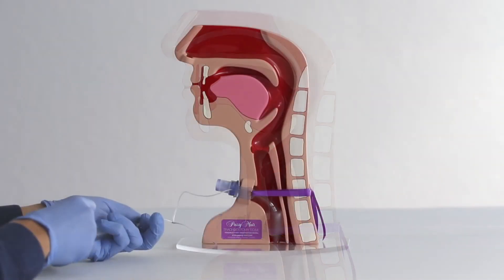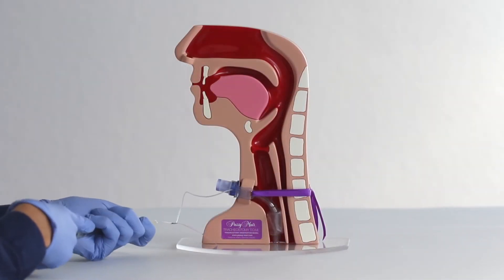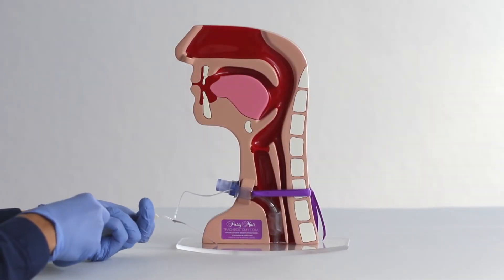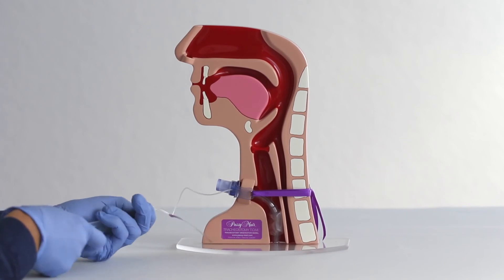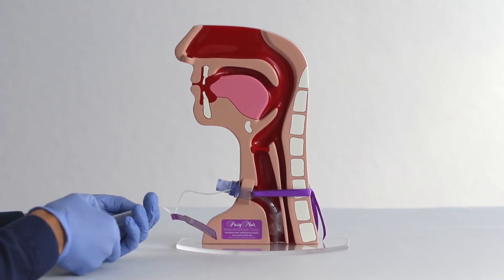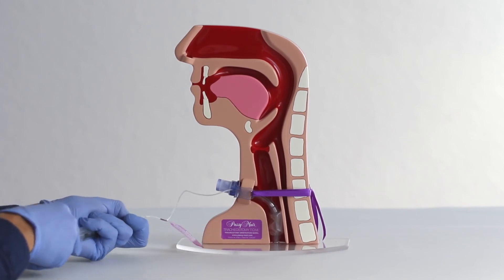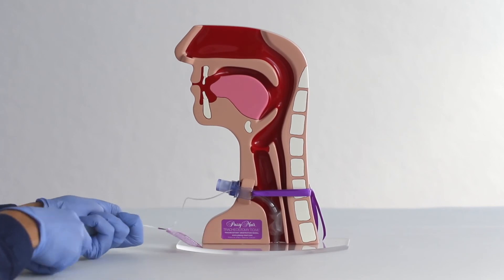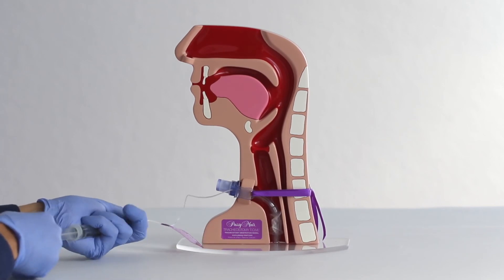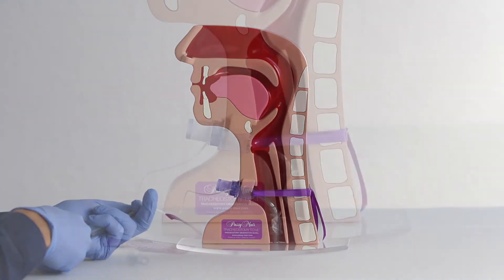Before placing the Passy Muir valve, deflate the cuff completely. Cuff deflation should be done very slowly, taking up to two minutes with some patients, depending on tolerance for change in airflow and the amount of tracheal secretions.